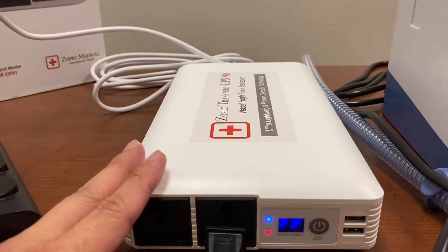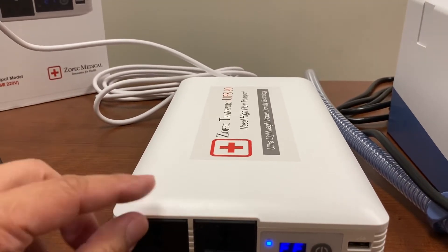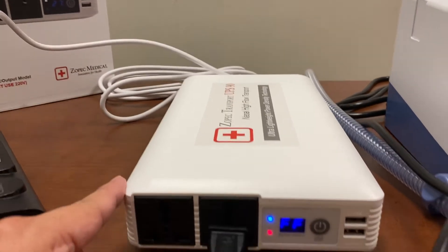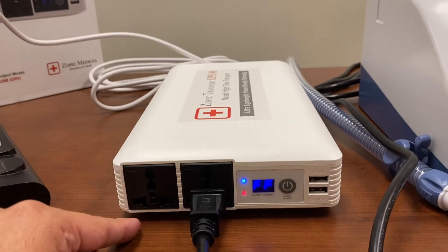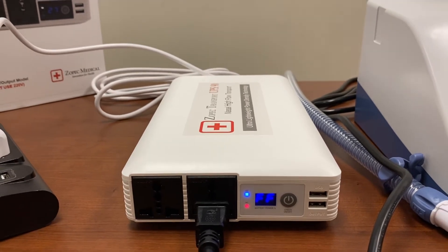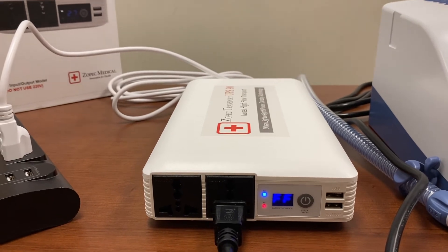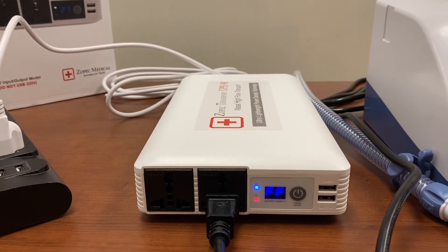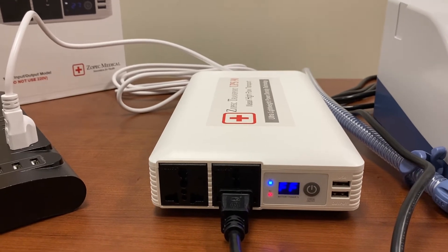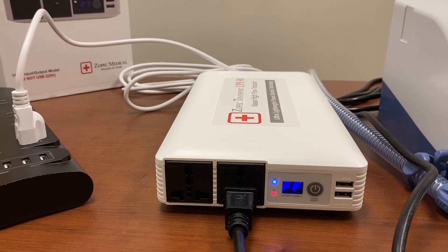This UPS is very small and very light. The length is about 11 and a half inches, the width is about six and a quarter inches, and it's about two inches tall, and only weighs 4.75 pounds. We designed it really small because it's very powerful and can transport for about 90 minutes — that's why it's called the UPS-90.